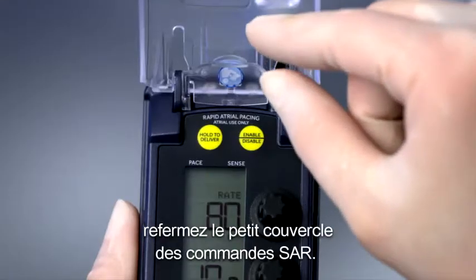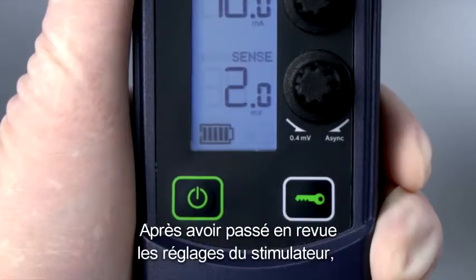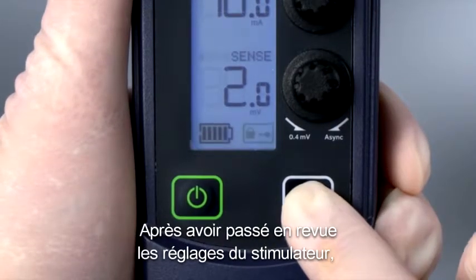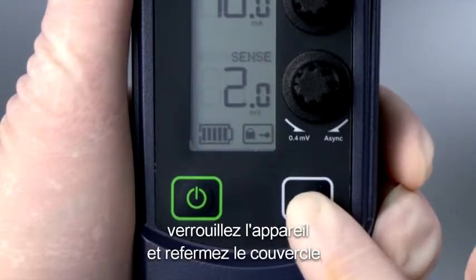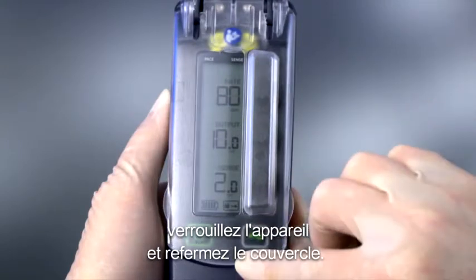Once you are done using the RAP controls, close the small RAP control cover. Once you've reviewed the pacemaker settings, lock the device and close the cover.